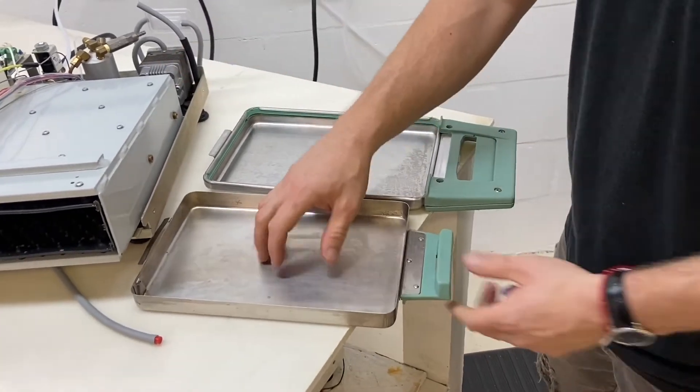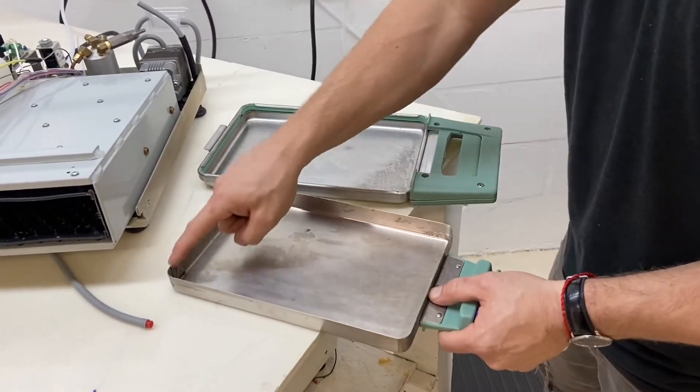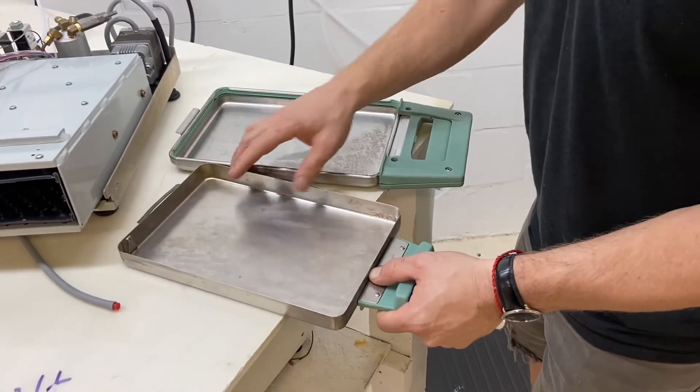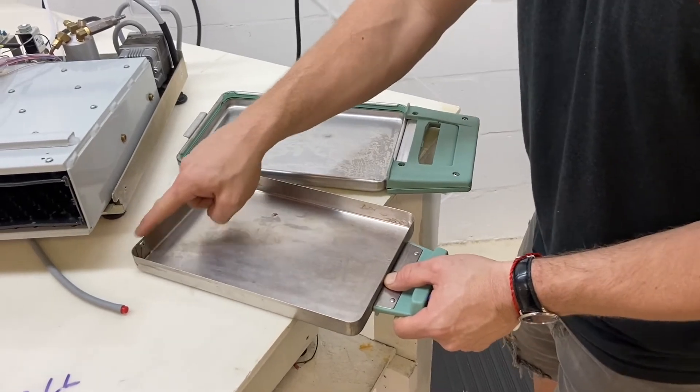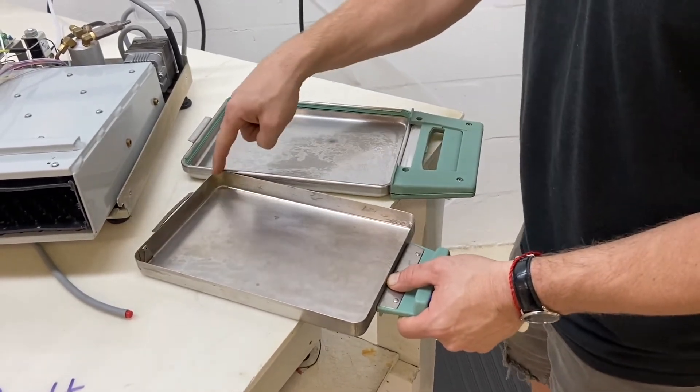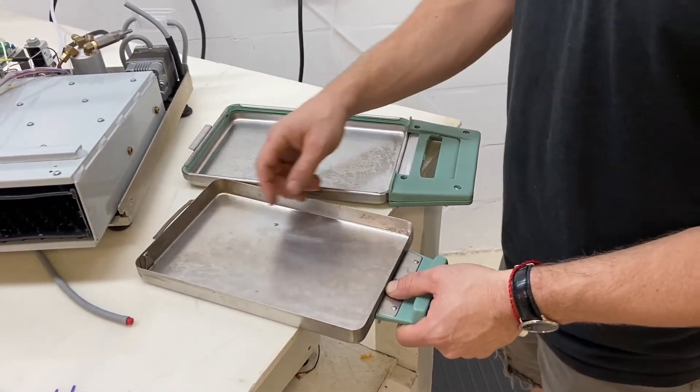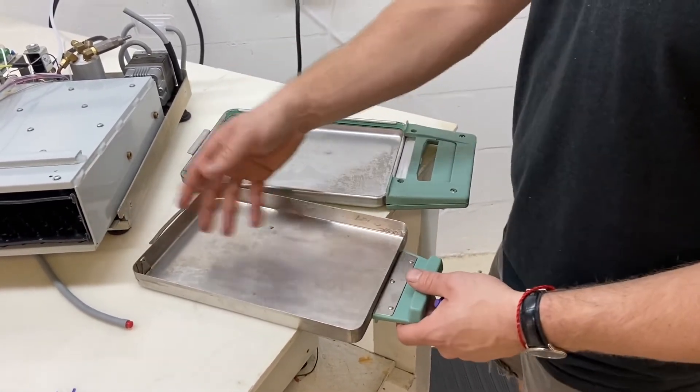We're going to make sure that the tray is not bent or warped anywhere, specifically the back corners. If any of those are kicked in, then that could cause a leak.